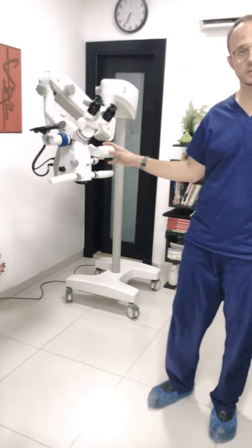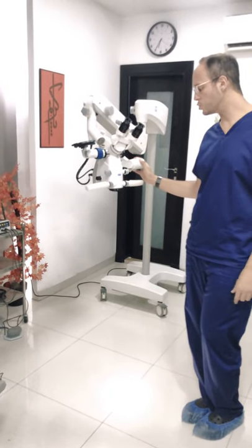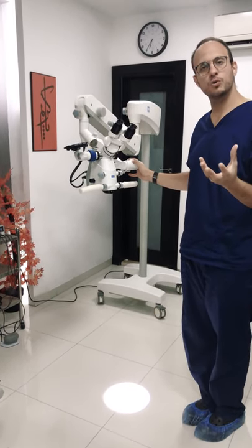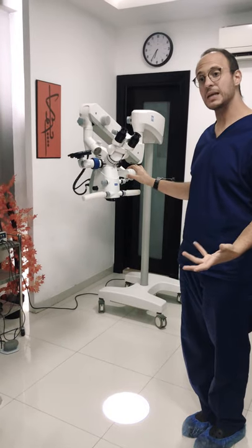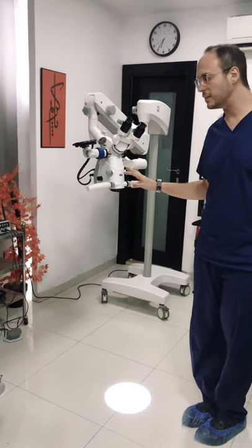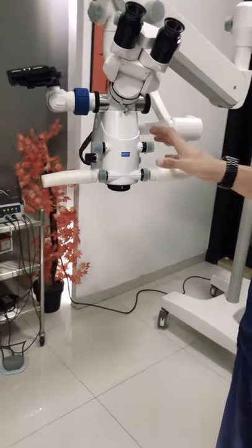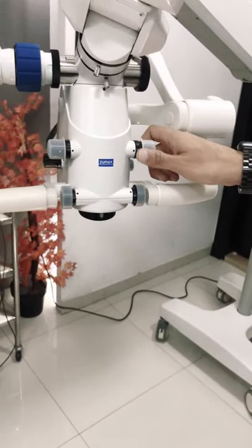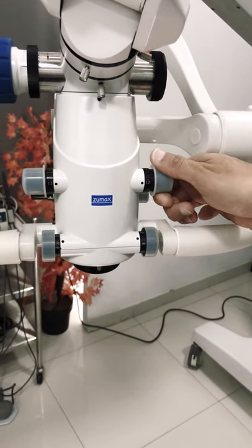The light intensity according to the company is 100,000 lux — the same as the Optomic viewed earlier. However, you can get a feel of a brighter view when looking through the Optomic. Still, the Zoomax provides a really clear view with a very nice continuous zooming ability. The same microscope is also provided in a 6-step magnification version, which is slightly cheaper, and provides the same setup, equipment, and ergonomics — but with 6 steps of magnification rather than continuous zoom.